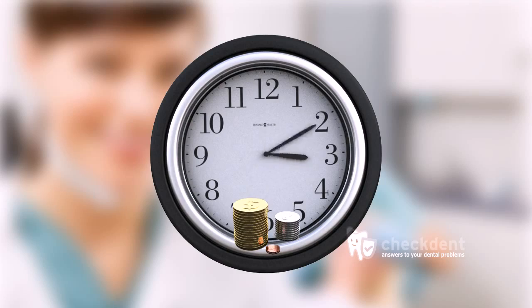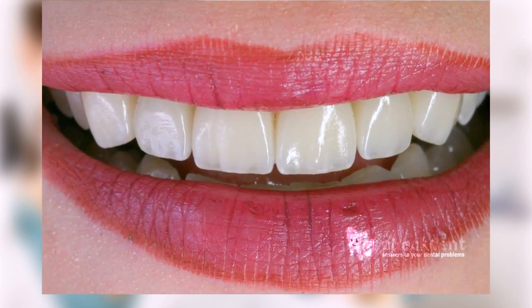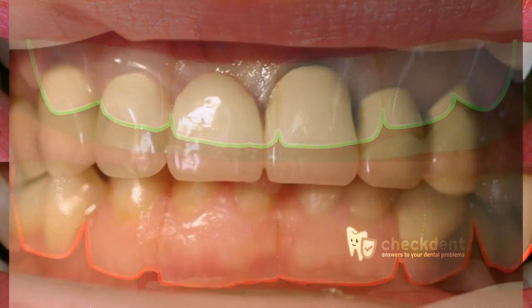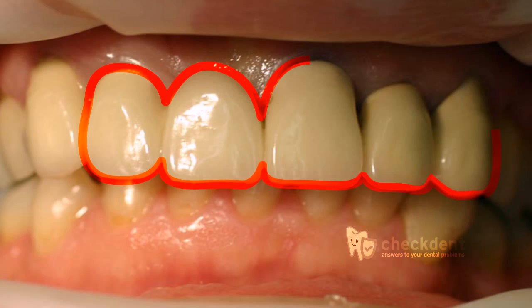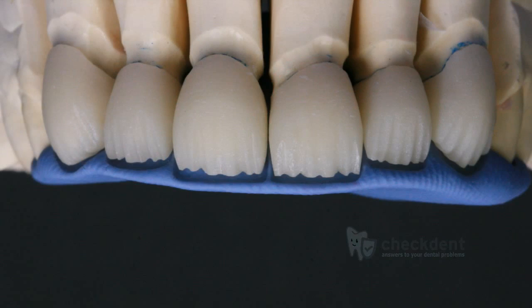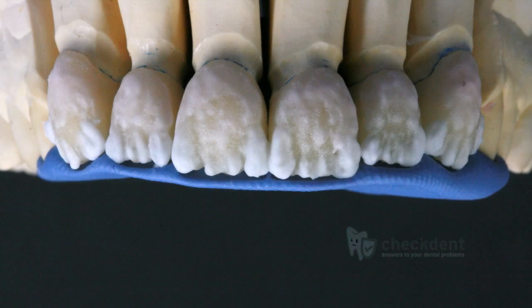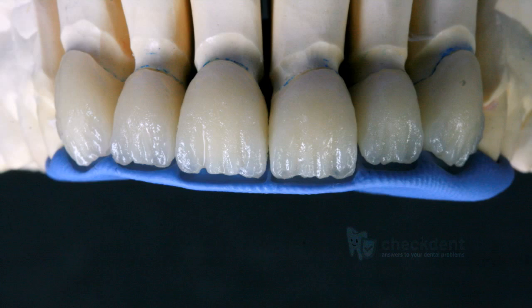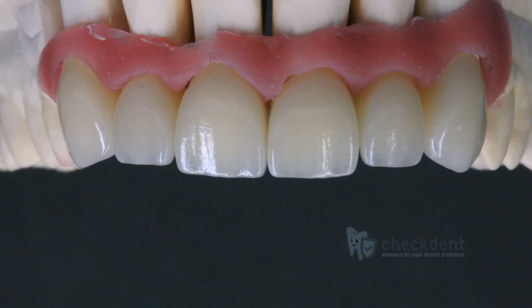The price is directly related to the working time and effort required. This picture illustrates an aesthetically pleasing crown which is not identifiable unless pointed out. This other picture illustrates crowns on the upper teeth which can be distinguished right away as artificial. In the first picture, the ceramic has been coated, meaning the patient sat with the dental technician, who laboriously painted onto the ceramic layer after layer until it matched the original teeth. The translucent effect of the tooth can thus be recreated.